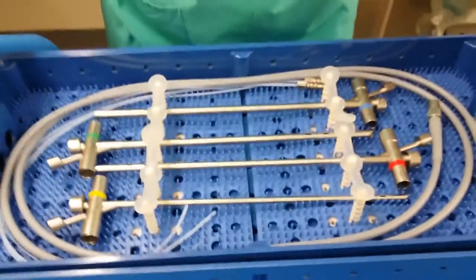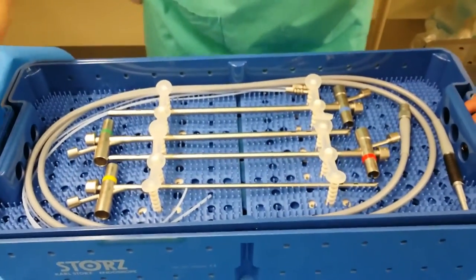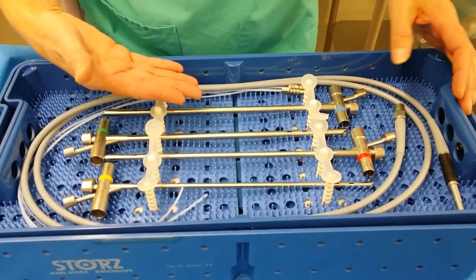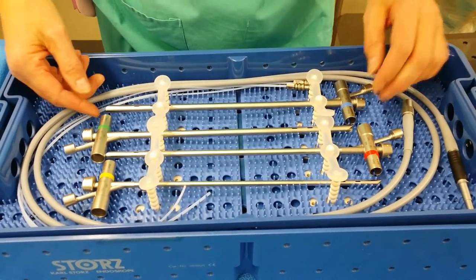This is a pediatric bronchoscopy set at Watford. It consists of four various sizes of bronchoscopes.